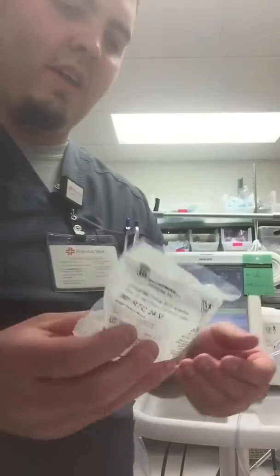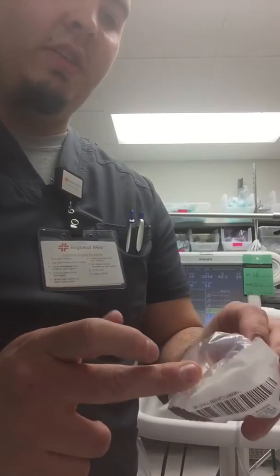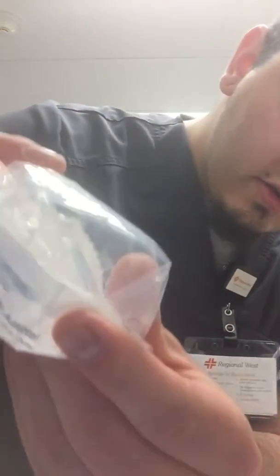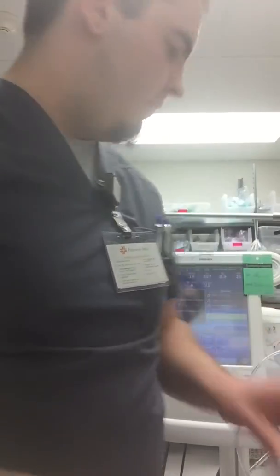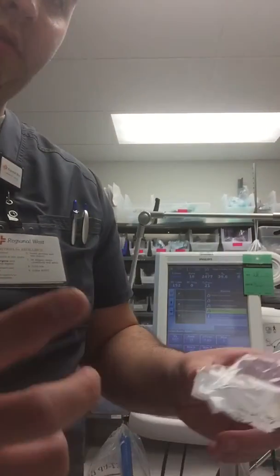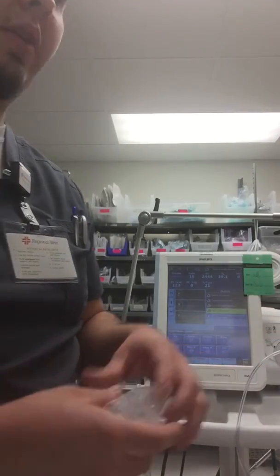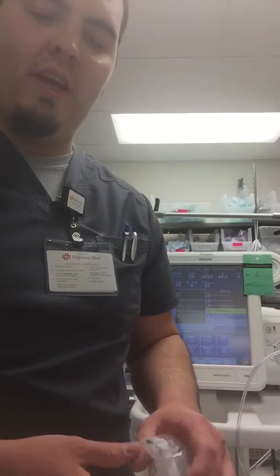And same with the inline MDI. It works about the same way. One side connects to the patient, the other side to the vent. This one, let's see if you can see it really well. Kinda. You will place the MDI on there. It kind of fits there, and then some machines should have a mode on there where you can do an inspiratory hold, in which, if you time it right, you can spray, do the inspiratory hold, and then let them breathe out like a normal MDI would do, or any sort of inhaler.